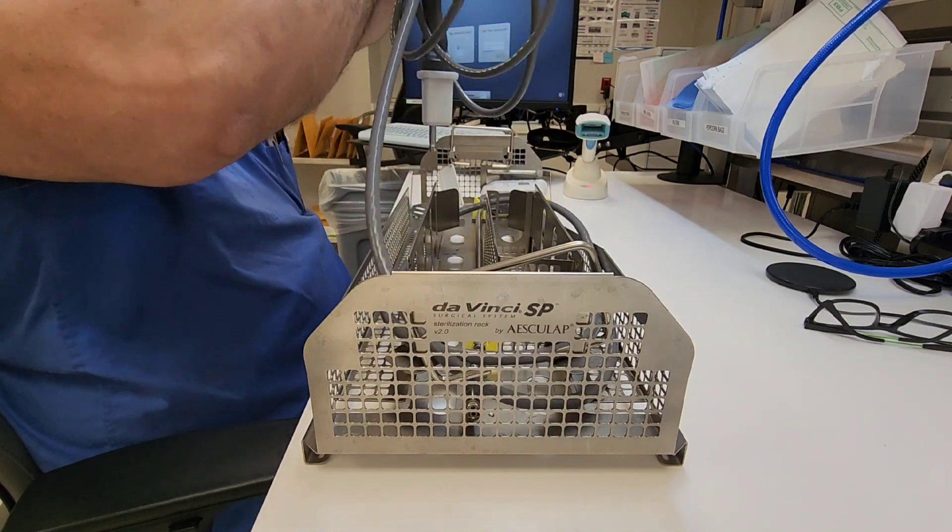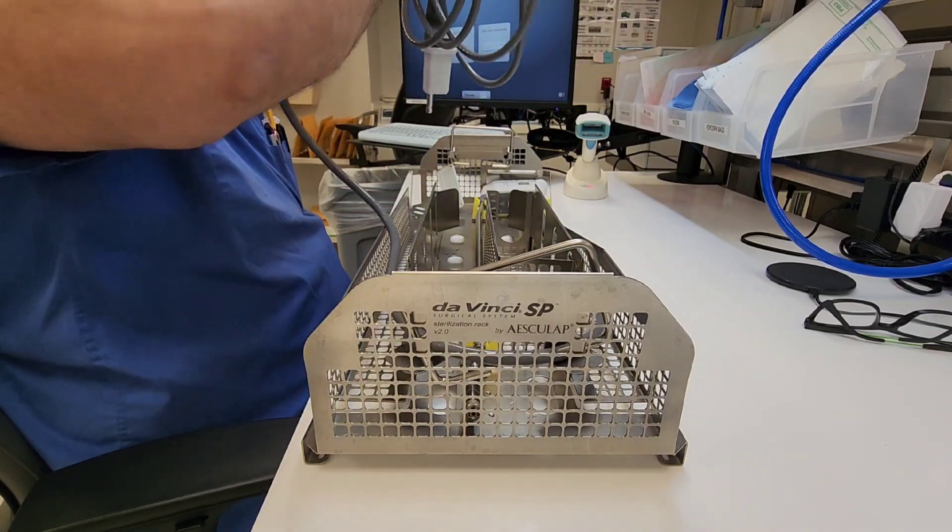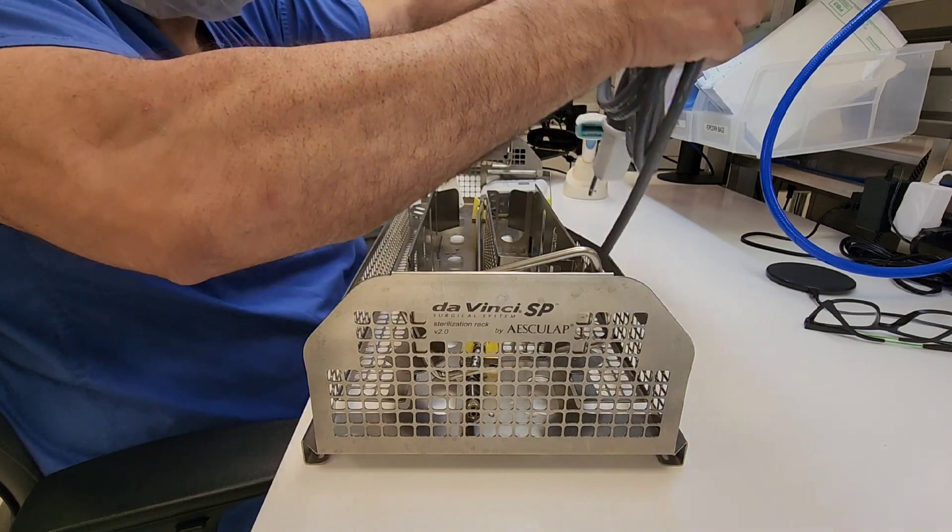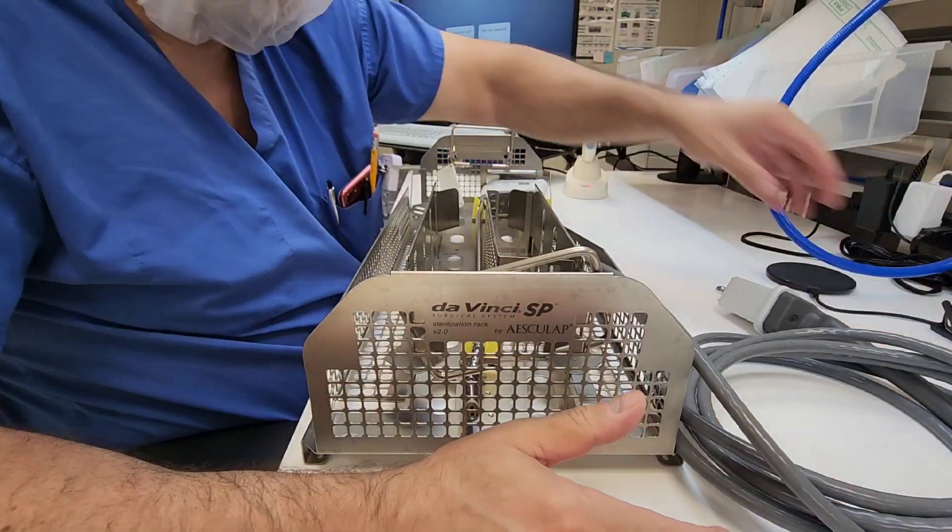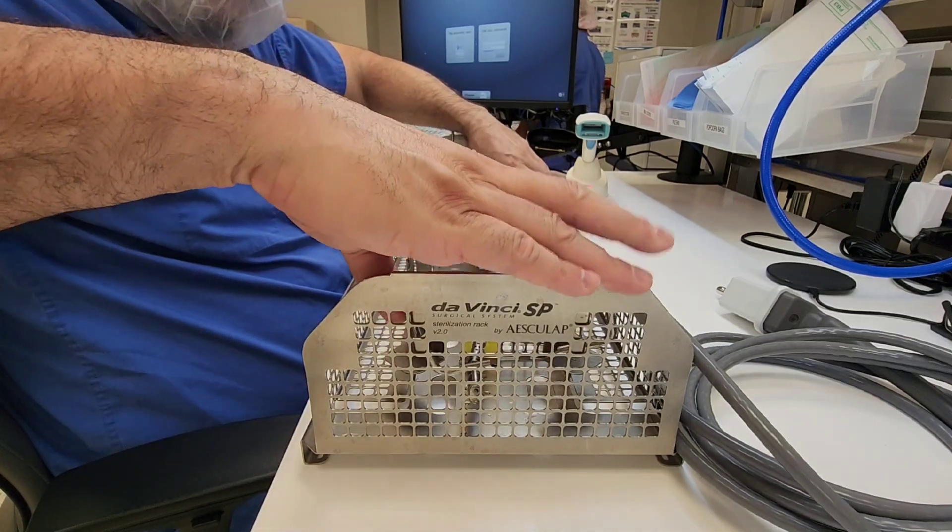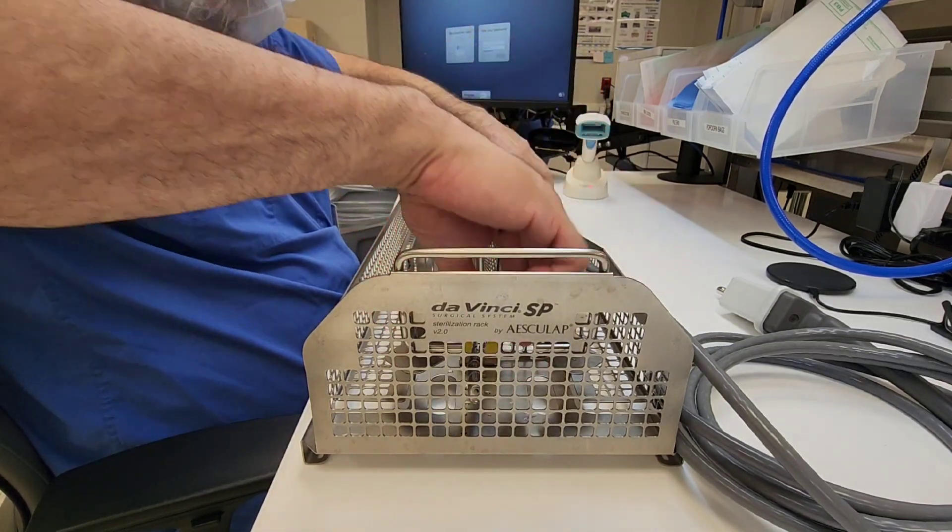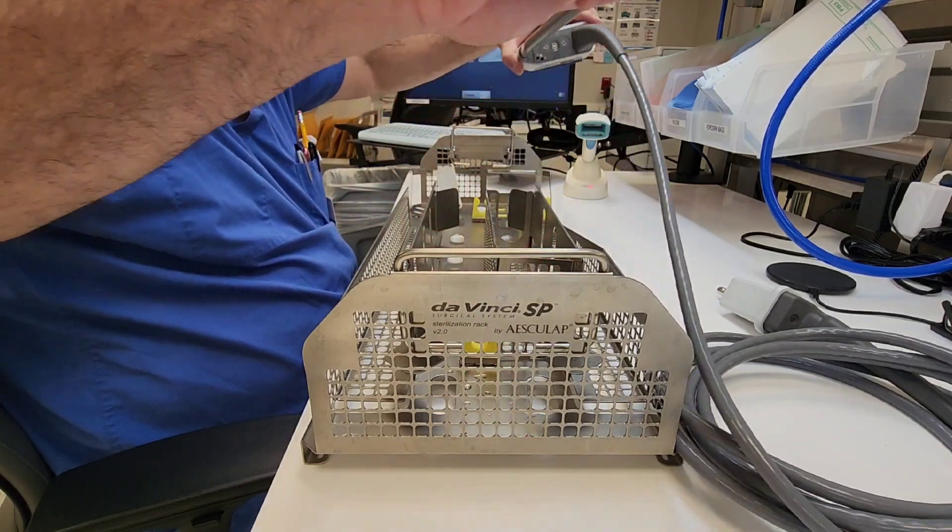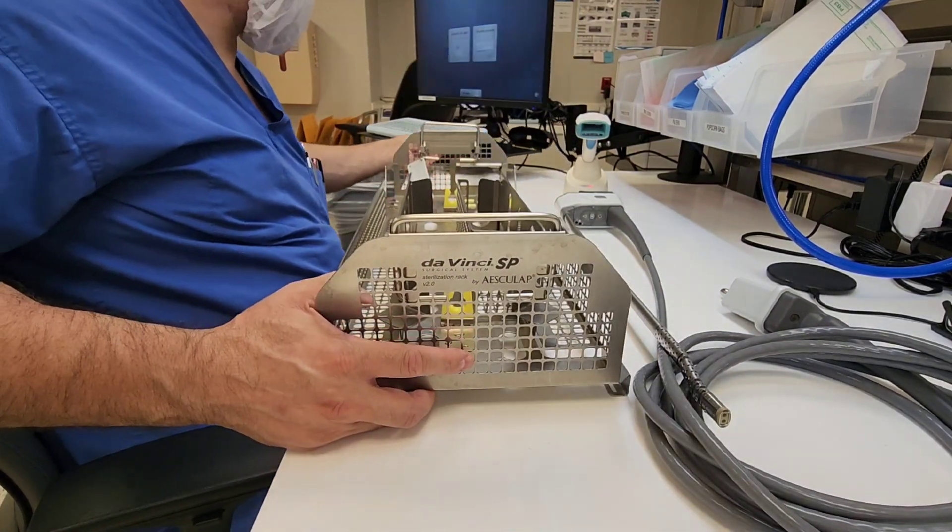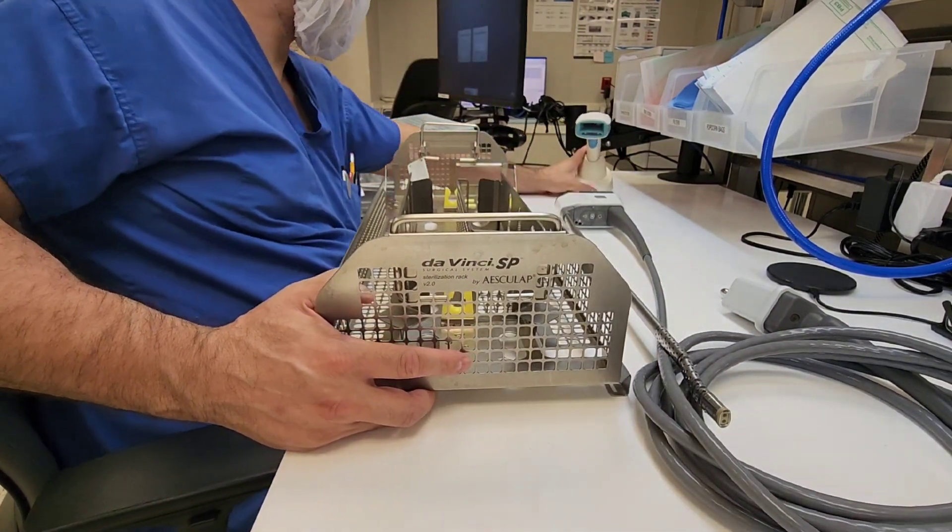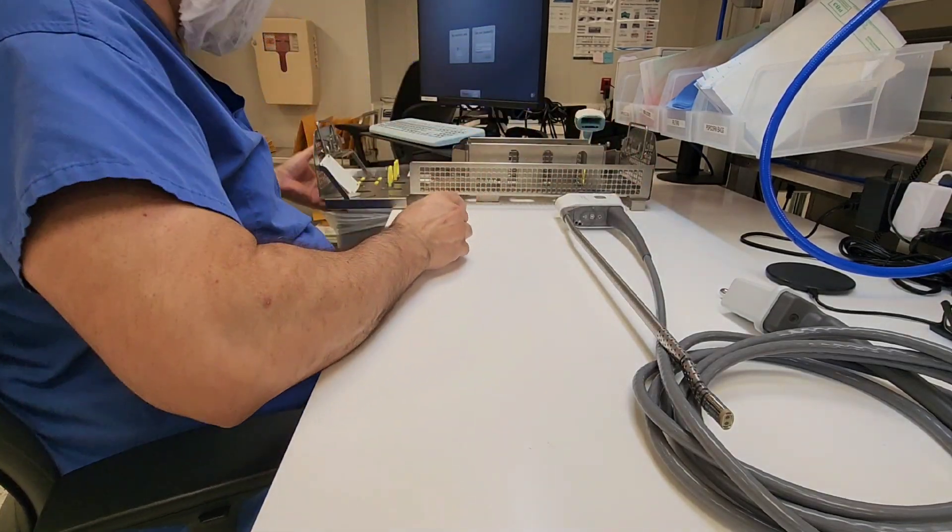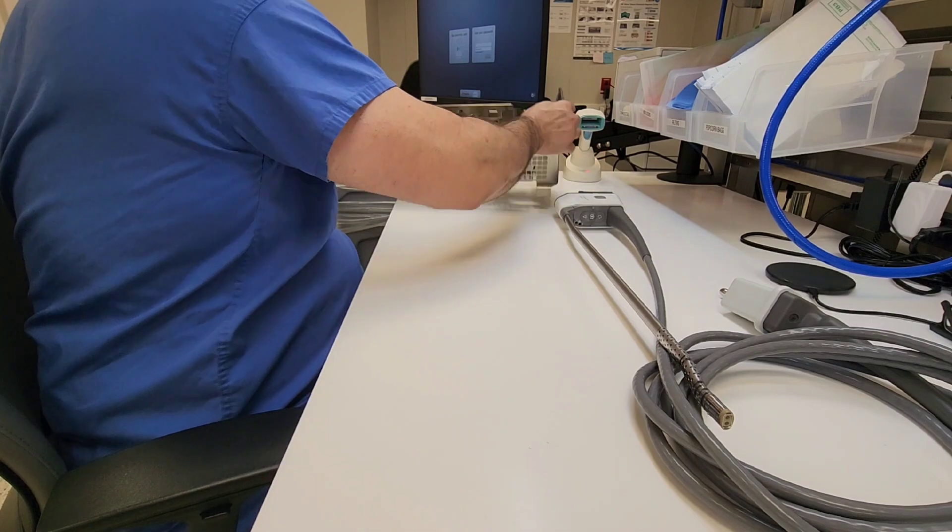First things first, hopefully the instrumentation was dried in decontamination as it should have been. You're going to remove the device from the container that goes into your rigid container. This is the holder validated by the FDA and approved to hold their device.